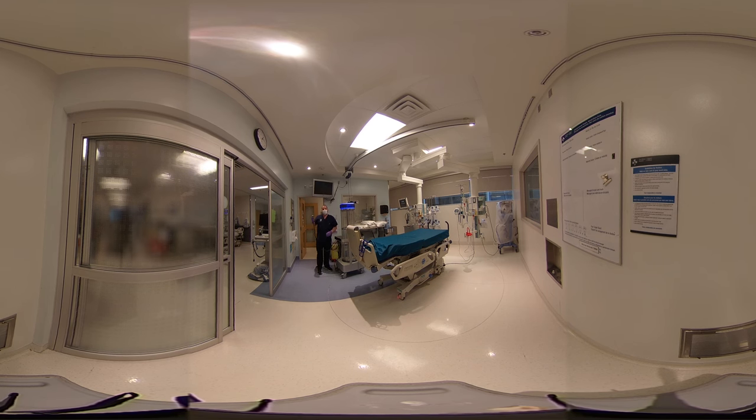Good afternoon. Today's demonstration is to introduce the rapid disinfector, also known as ultraviolet disinfection, which basically is radiation cleaning. After housekeeping has come in and cleaned the room, I recommend an extra layer of disinfection using this machine.